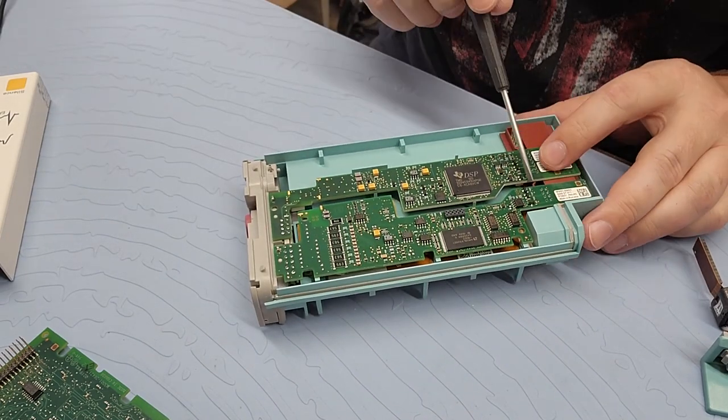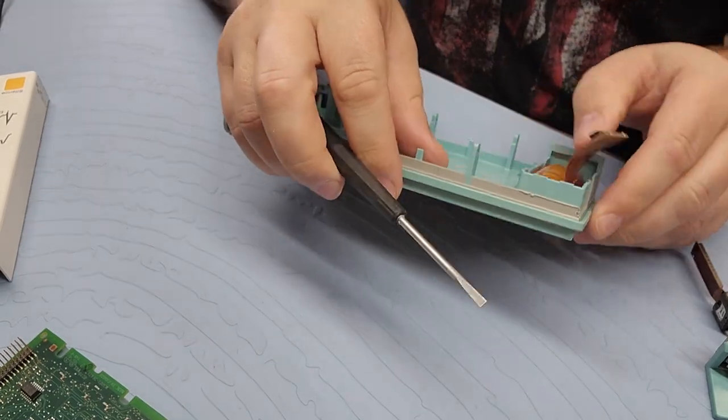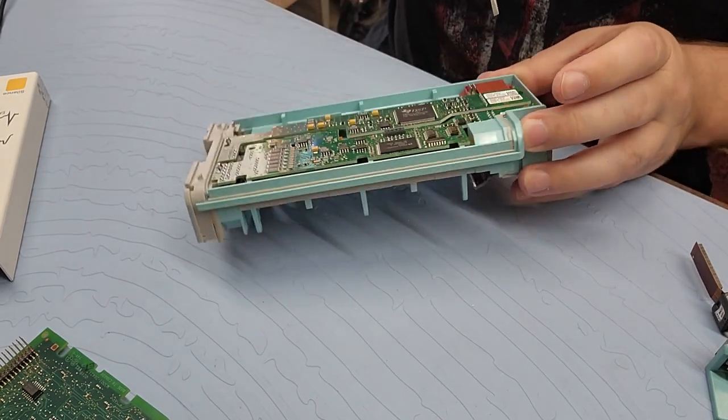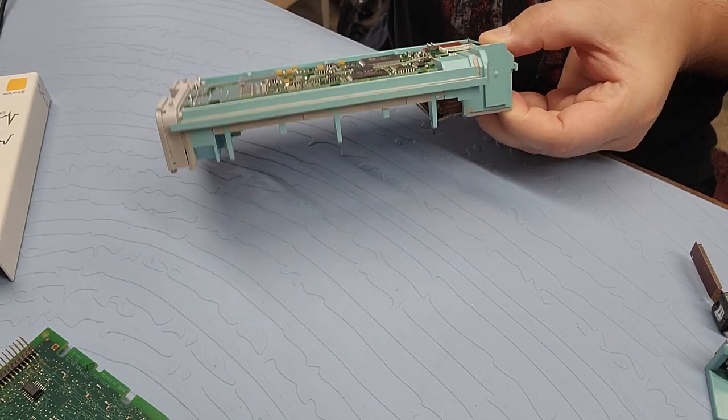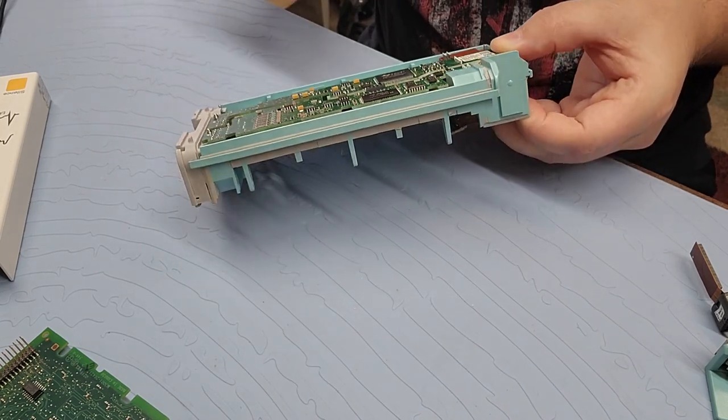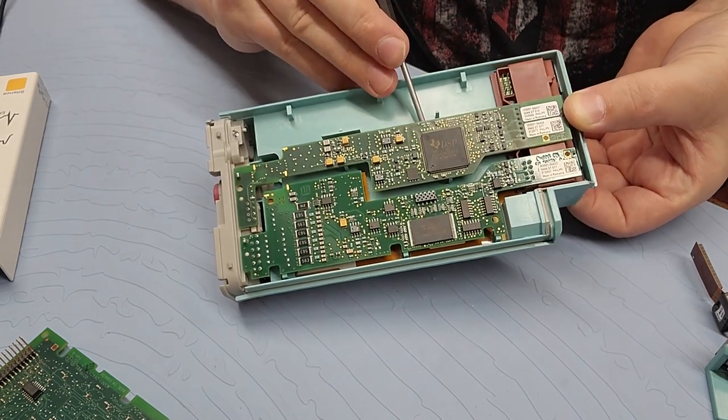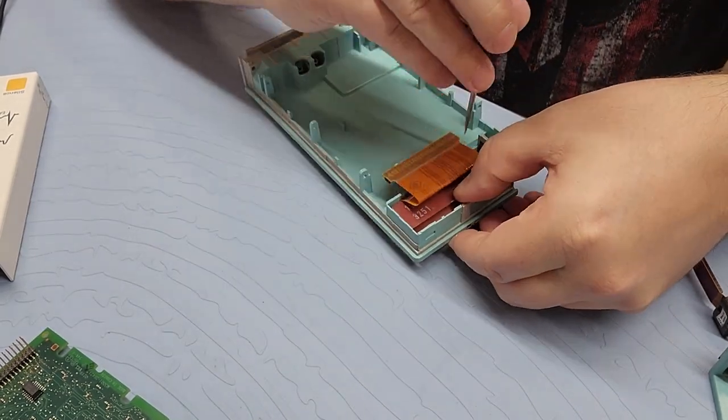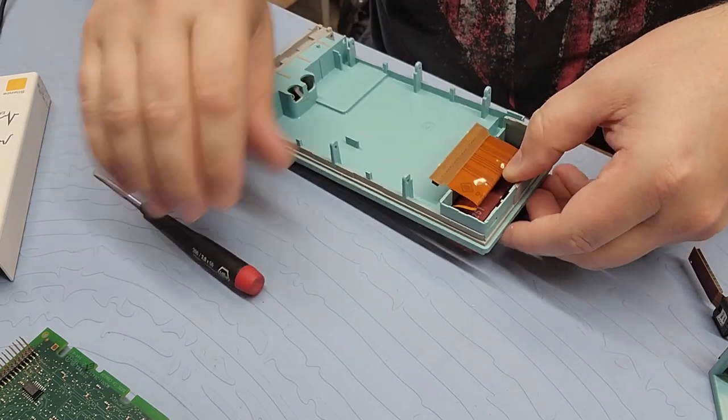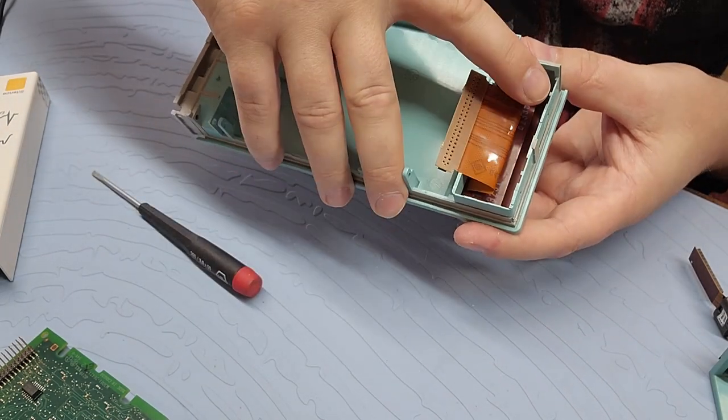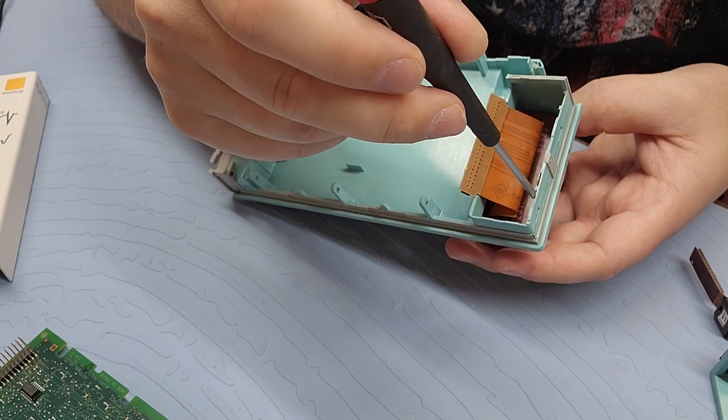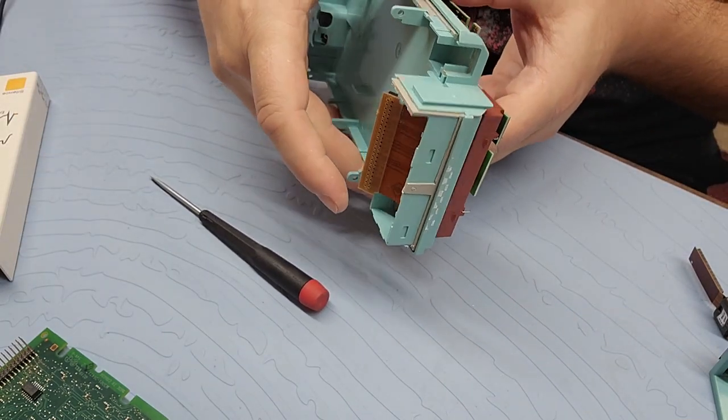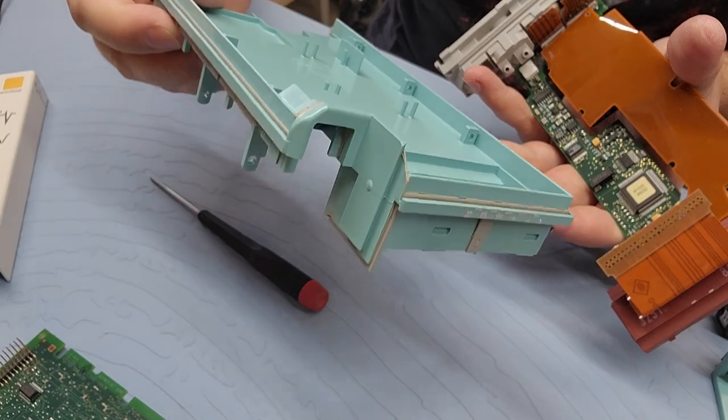Okay, I can see some retainers down here. Yep. Alright. There's one. There's two. Where are the other retainers? Probably on the other side of this guy. Aren't they? Yep. Okay. So, the retainers are these little holes right here. Just little plastic latches. So, all I had to do is stick this down in there. And just the tension of the wedge just unlocked it. And they want to fall right out. Alright. So, that is the backside of the chassis. And here are your option boards. Very cool.